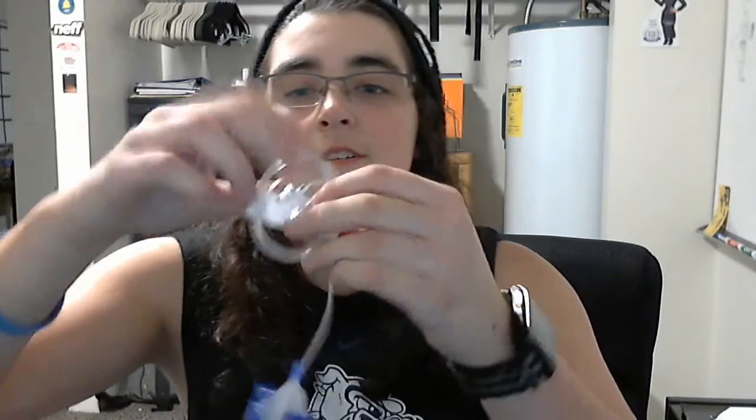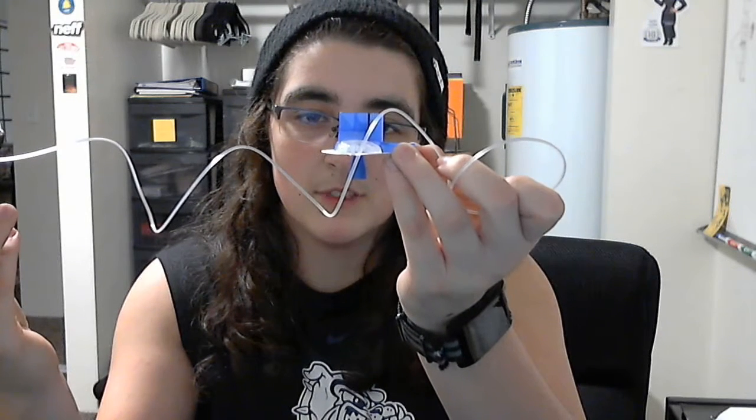So now I'm going to take my tubing and connect it. You can see this tubing is longer than my normal tubing, at 32 inches. Full set — we're now going to connect it to the pump. Just twist it in, and then we begin filling up the tubing with insulin. I'm just going to wait until I get drops at the end. And there we go.